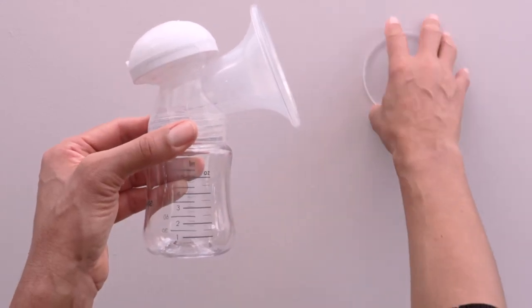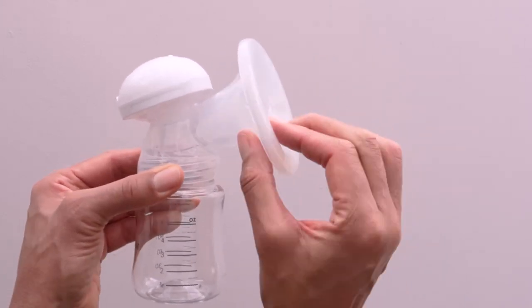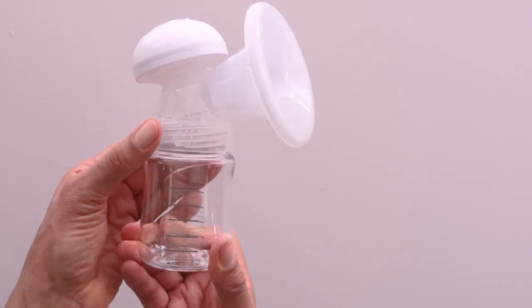You can use the dust cover to protect the pump whilst you're not using it. To order spare or replacement breast shields and 3D cushions, check out your manual.